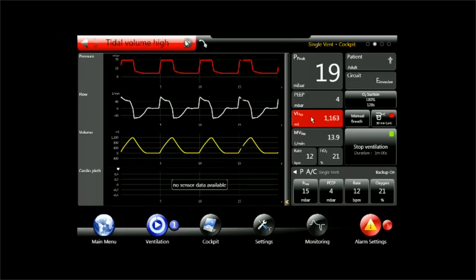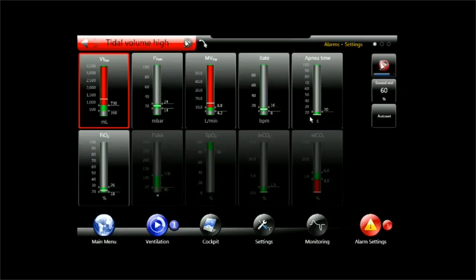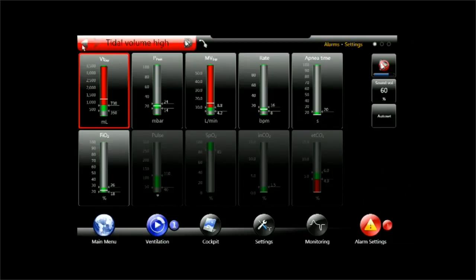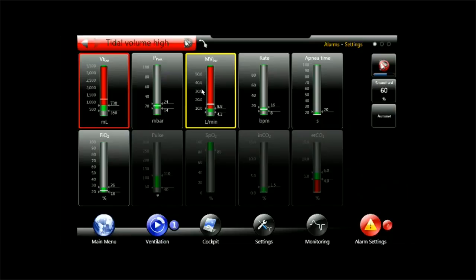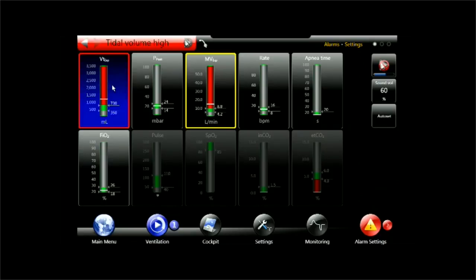I can now click on the monitoring value and I arrive directly at the alarm settings panel and I can see here, yes, it's a tidal volume alarm which is affected. It's the upper limit. This is the green zone. This is the safe zone and I also receive a minute volume alarm which is a second priority or low priority alarm and so I want to adjust both of them.